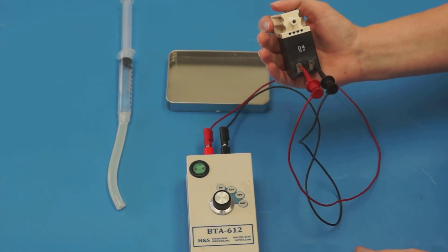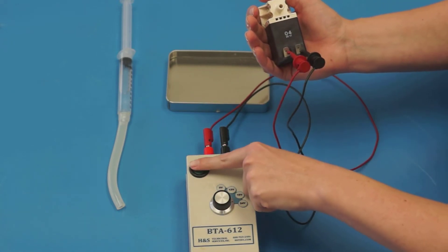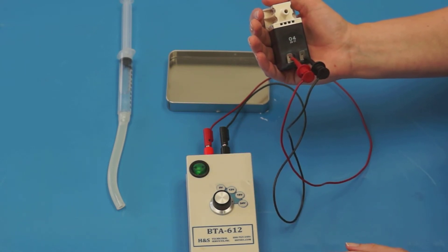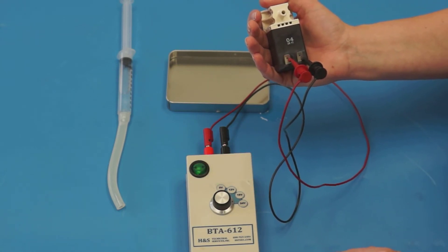Hold the valve in one hand. Turn on the power to the tester and verify the solenoid has energized. You can feel the solenoid retract when turned on.